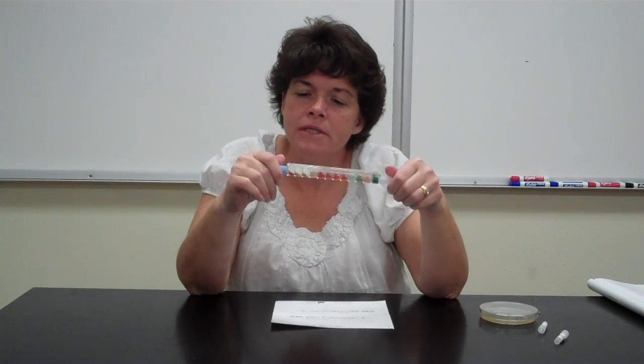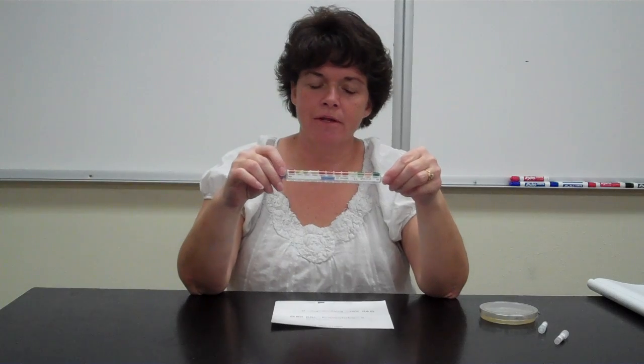Sometimes it doesn't interpret the same for everybody. Maybe this goes more pink than yellow. What does that mean? So we'll interpret it and I'll ask you how you got your number. And we'll go, well, is that really gas or is it not? Okay, and we'll determine all of that. And then we'll look to see if your code really matched. If you need to do a confirmation, then we'll want to do the indole and the VP test.